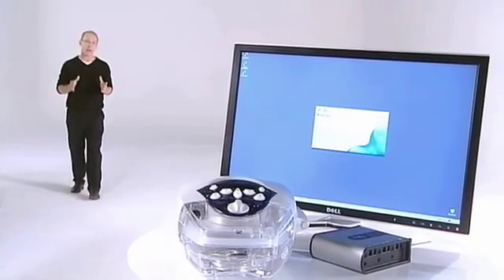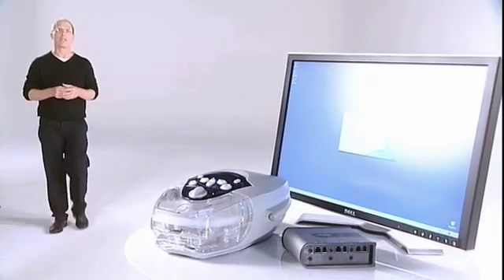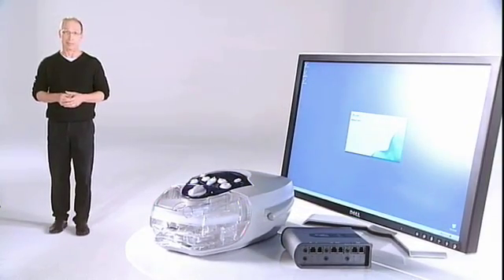Perform successful titrations while you optimize patient comfort. It's ResMed's VPAP TX lab system — a solution that makes the titration process very simple to manage while it creates the least disruption to the patient's comfort and sleep. Let's take a closer look.